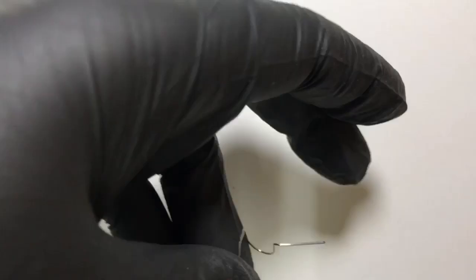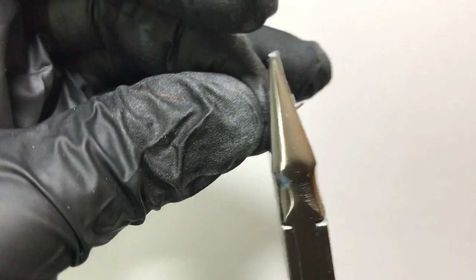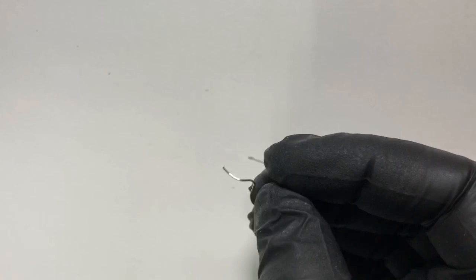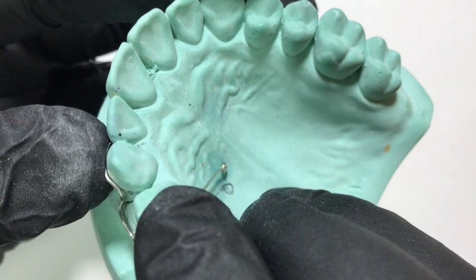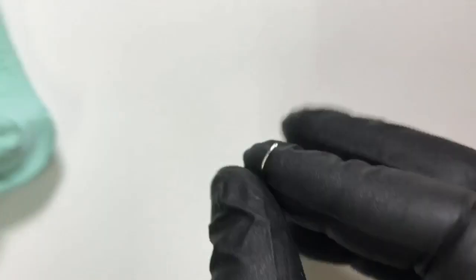Once the outward bend is done, we remove the excess wire by cutting it. We then engage the wire in the rounded portions of the universal plier and give a rounded adaptation following the contour of the canine. We check again to confirm it follows the contour. We have almost completed the appliance and can now begin minor adjustments at the palatal aspect and active arm.